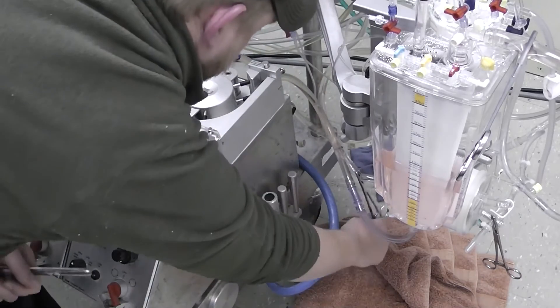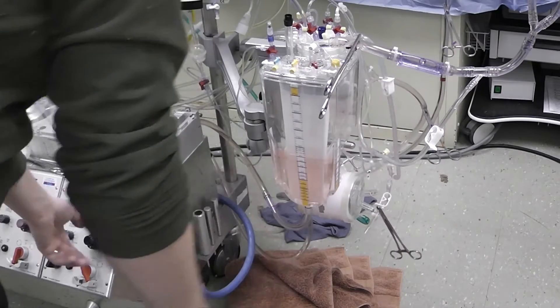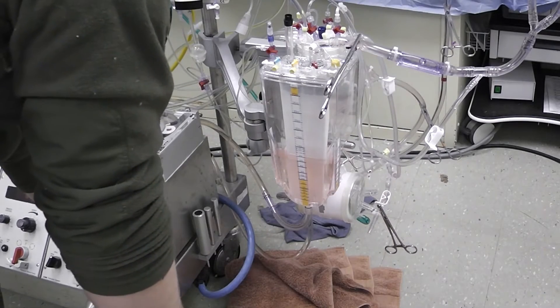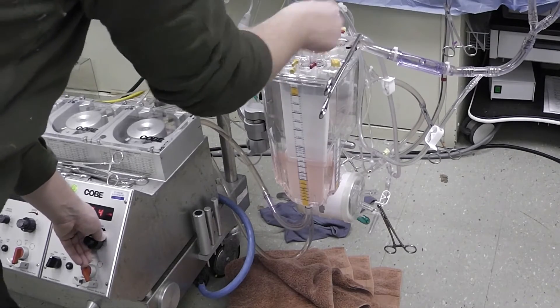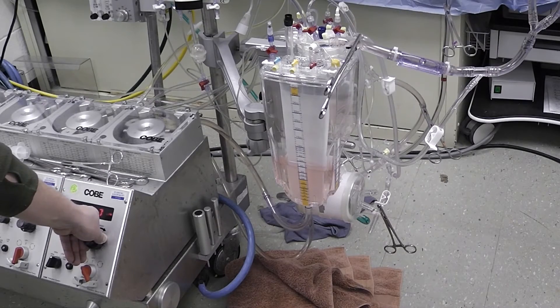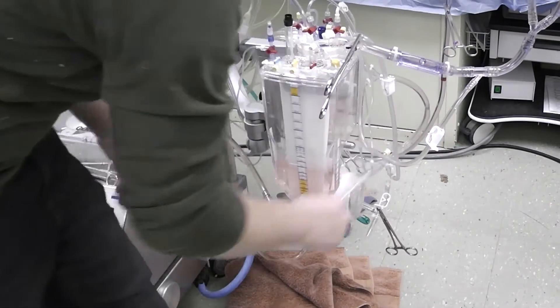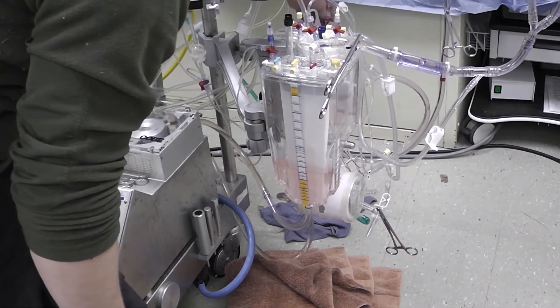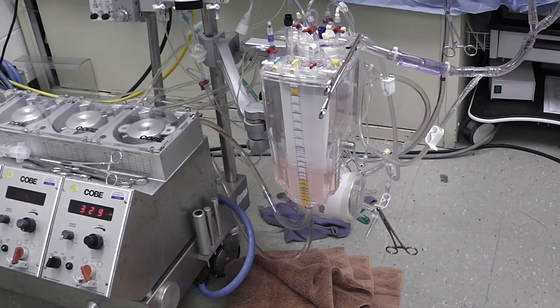Remove those clamps. Now that we've replaced the pump head, we're going to start flowing through the recirculation line, open up the other purges and let that de-air. As soon as that's de-aired, I'm going to open up the clamp to the arterial line filter on the proximal side, open up that purge, and we're going to let that flow and de-air through the arterial line filter.